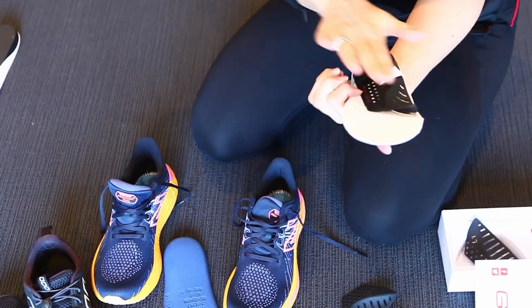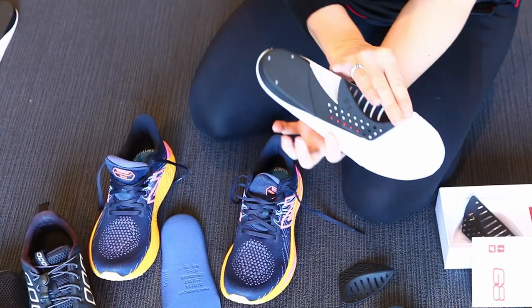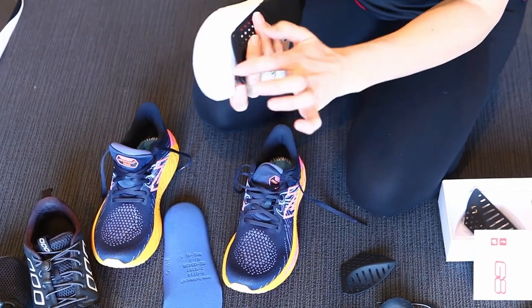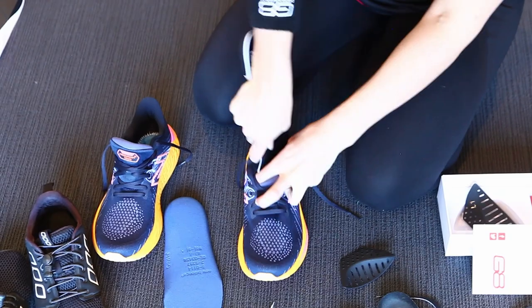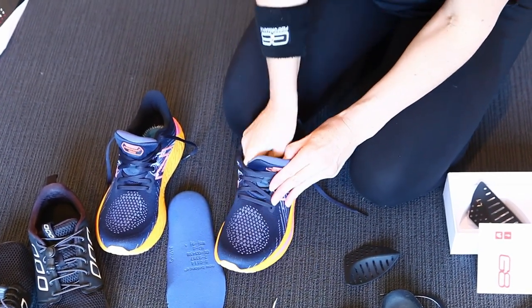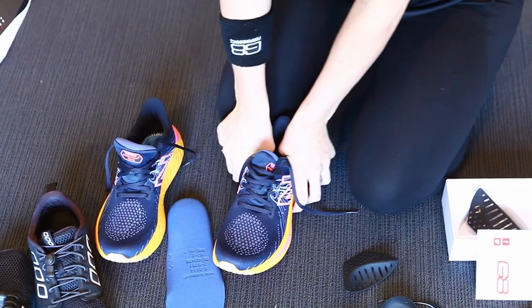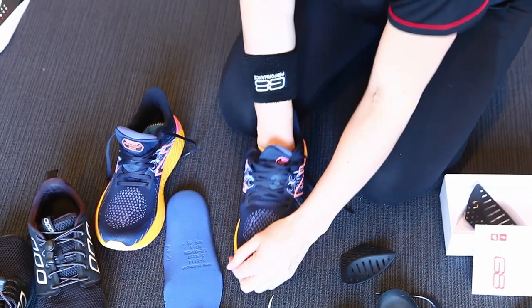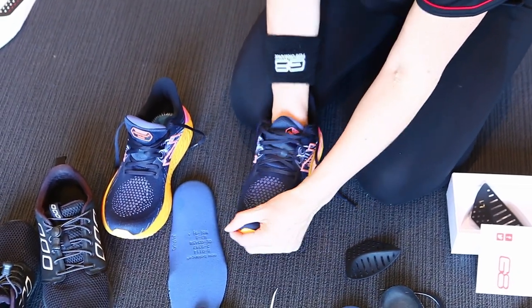I'm going to put them into the shoe, making sure that I hold them down and hold the arch piece at the front with my fingertips as I slide it in, because that bit can fold over and get stuck sometimes. That's much better. I was struggling with the fit — I thought it was the narrow fit of the shoe, but I actually needed to take more off the ends.